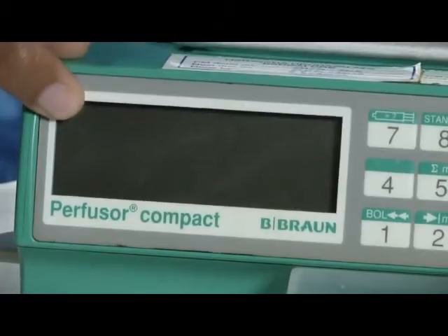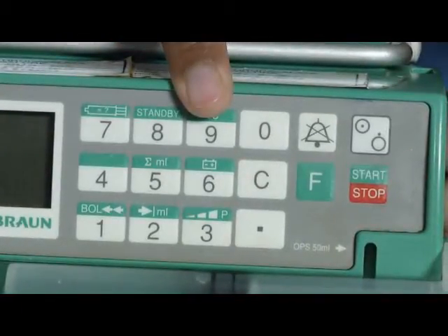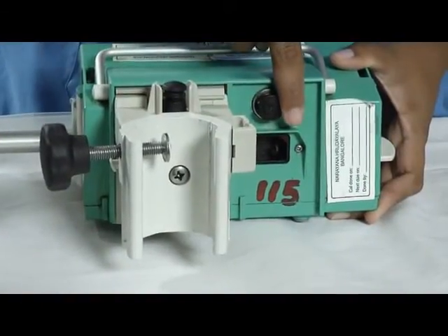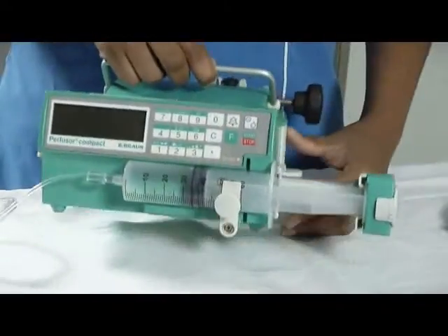This is the monitor or display, buttons, two locks, clamp, power connector point, and this one is the handle.